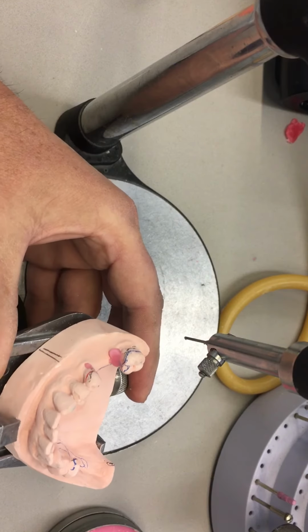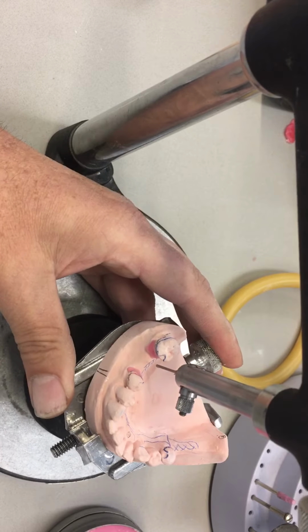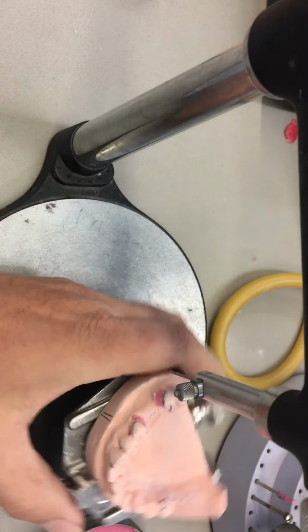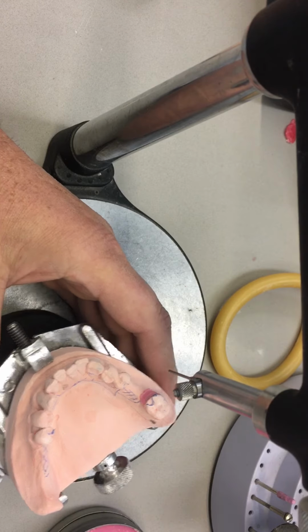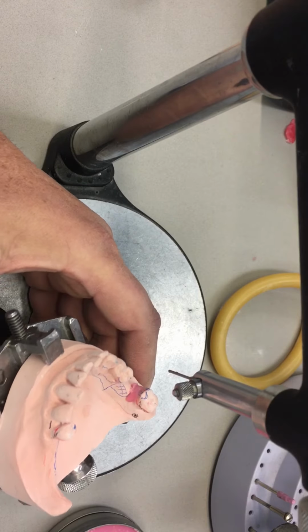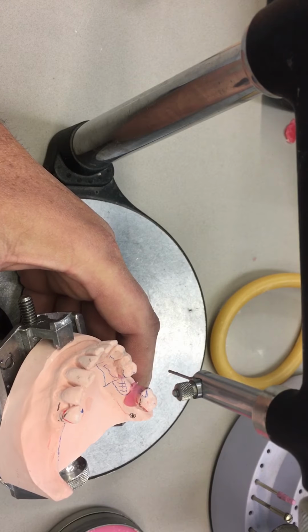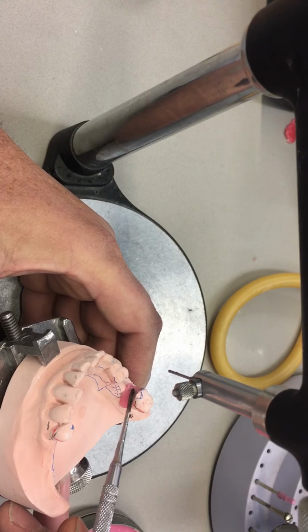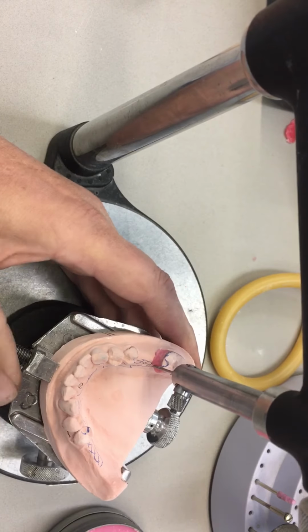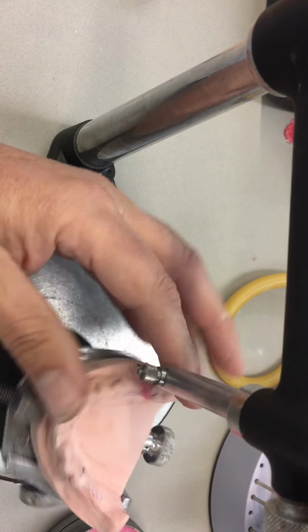As you see here, I'm applying the wax, and then quickly, before it solidifies, I'll use the analyzing rod to scrape away. I can only do so much at a time, otherwise I'd have to get my alcohol torch reheated. So I would start off with the guide planes. We've already marked with pencil, blue and red, the reciprocal arm and the retentive arm. Now, I would use a surveyor to scribe the guide planes.